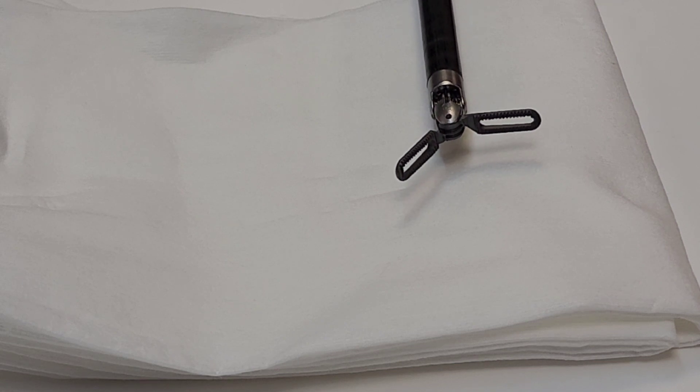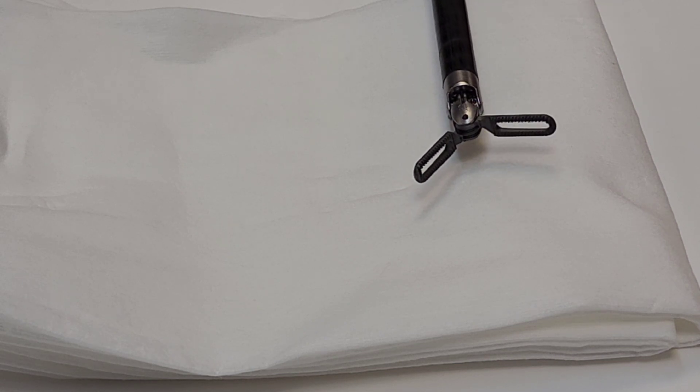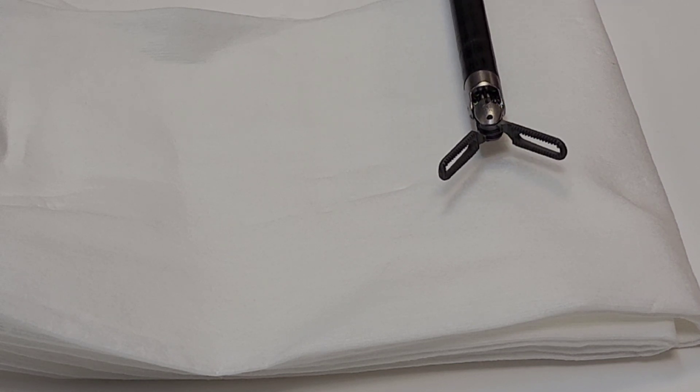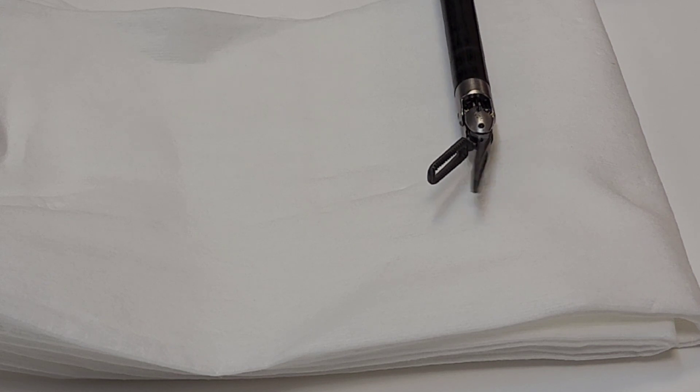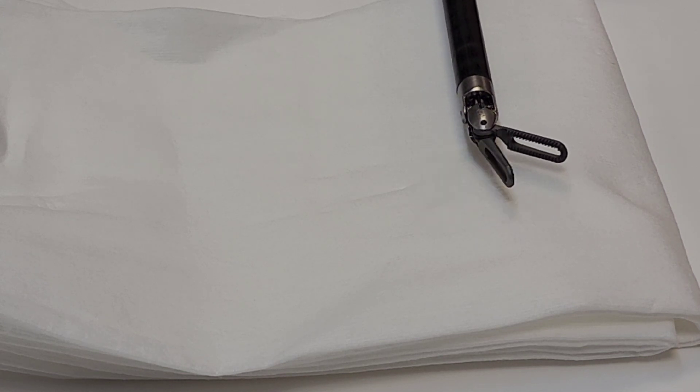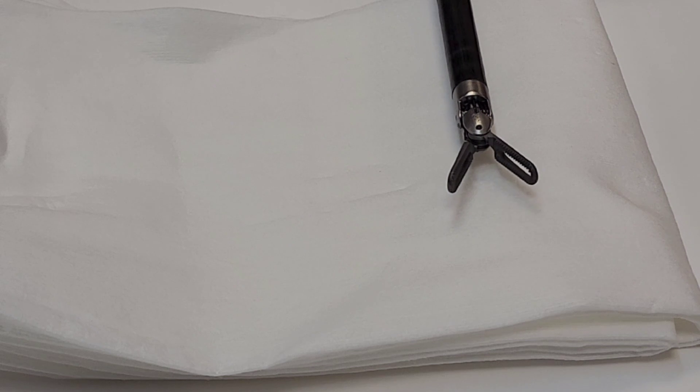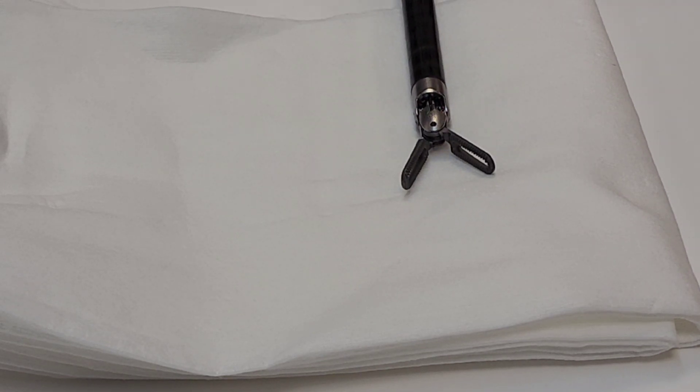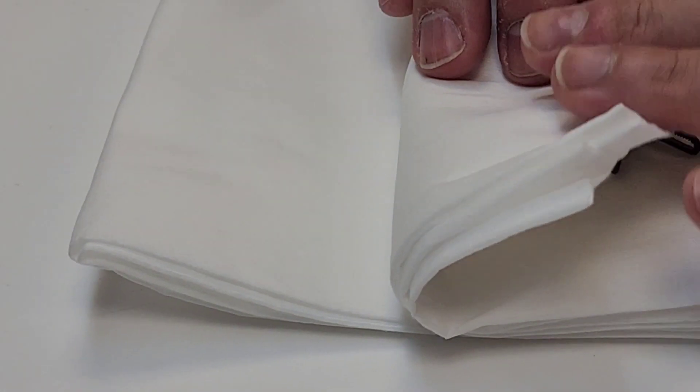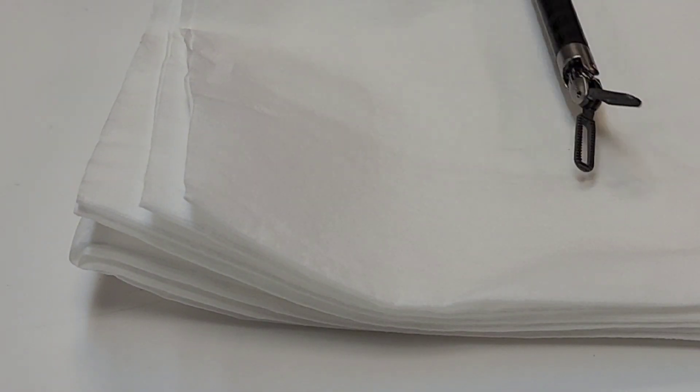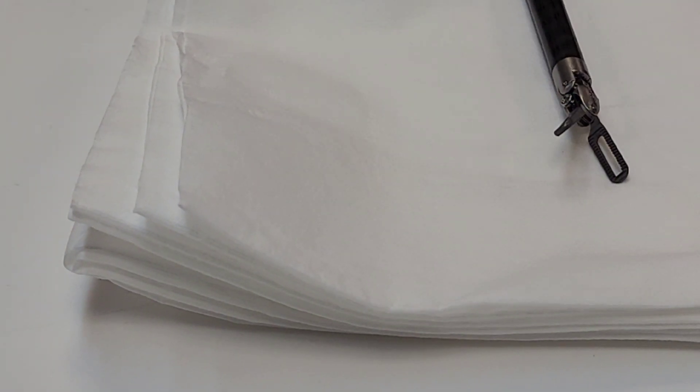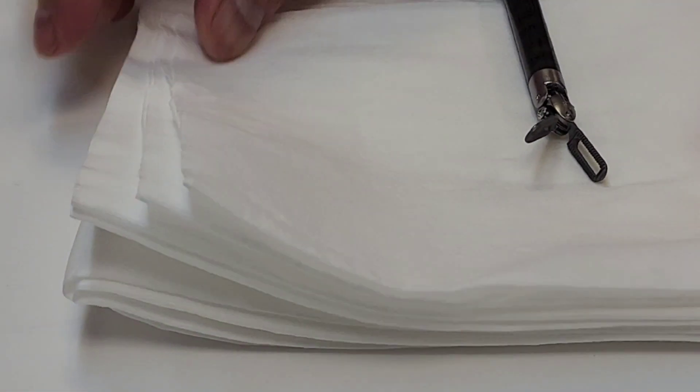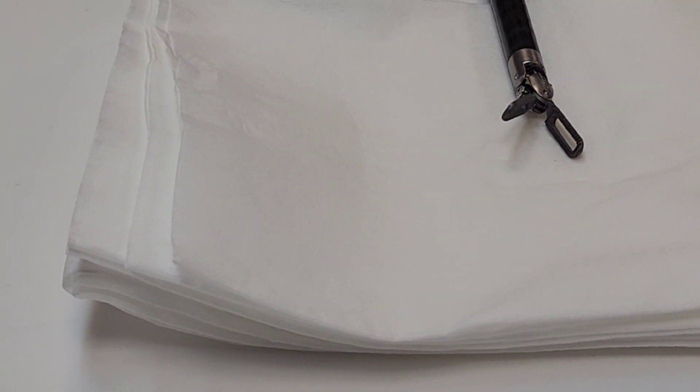The specific lubrication I'm using is an oil base. You don't want to put too much of that on there - you just want to put a small little drop, and then you want to manipulate that jaw so that you can get that oil into every little nook and cranny on the tip of that instrumentation. Then you want to blot off the excess, as I've shown here. Make sure that you blot off the excess so that there's nothing dripping into a pan that may look like a wet pack.